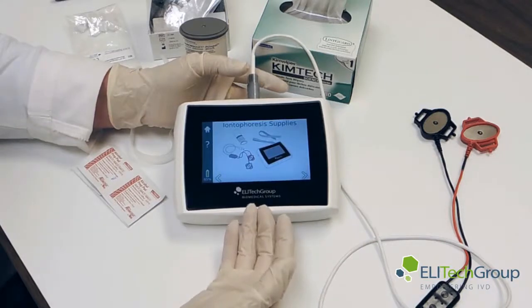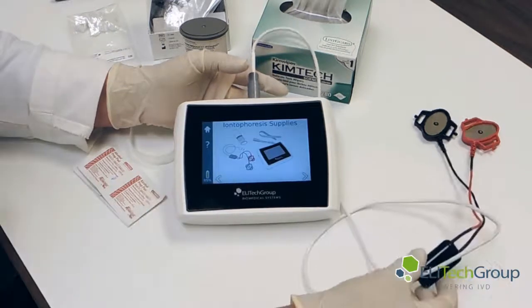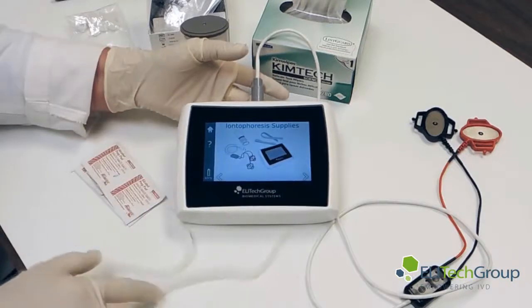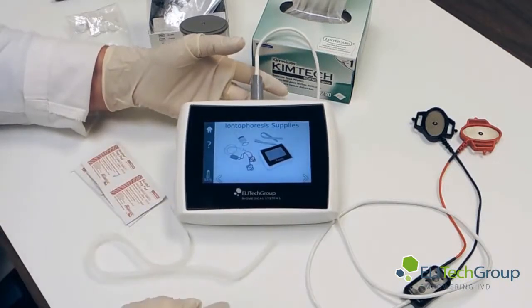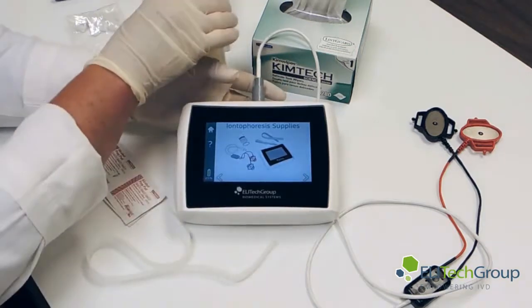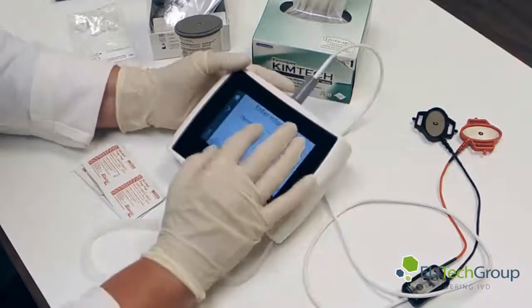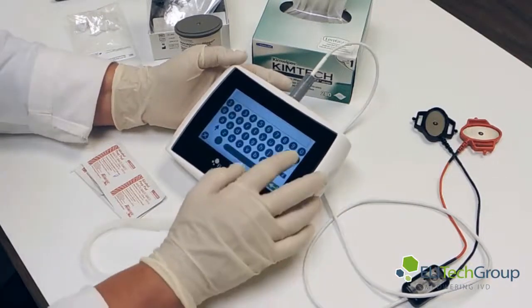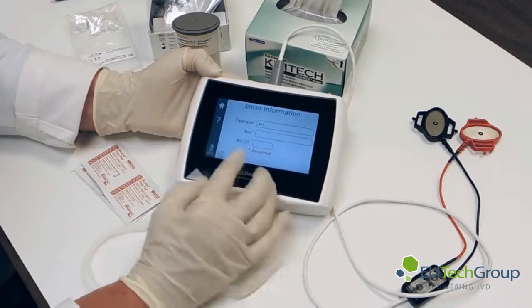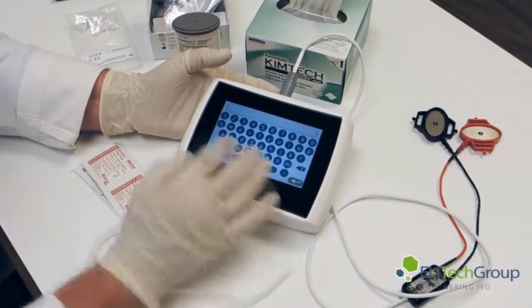We can go through the screens. What it shows us now is iontophoresis supplies. We have the cables which we connected up while it was powering up. We have straps that we'll connect our collection MacroDuct to, and we also have the PilotGel disks. Now what we do next is go through the operator setup. The operator will put in their name — I'm just going to put my initials, P-N. We're just going to number the test today so you can see what we're doing. The test will be number one.